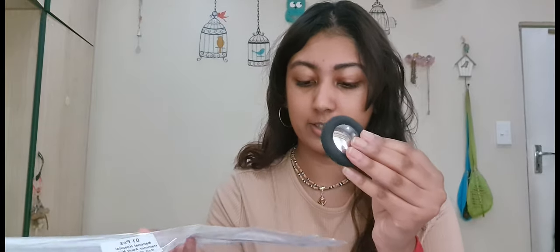We do need a patella hammer, and I got the adult one. I think it's the Babinski one that comes in two pieces, so you just attach it to the side. Shall we open it and try it? This is for reflexes — you knock it on your knee.